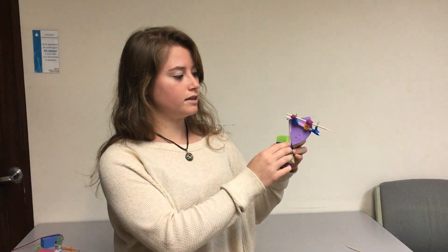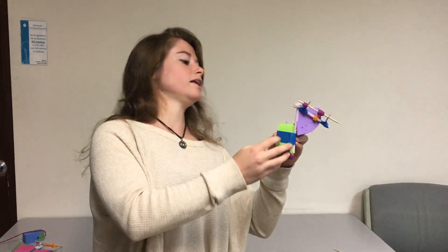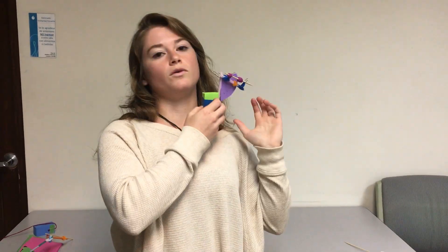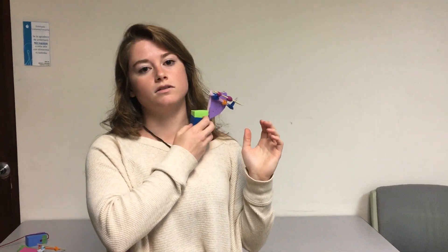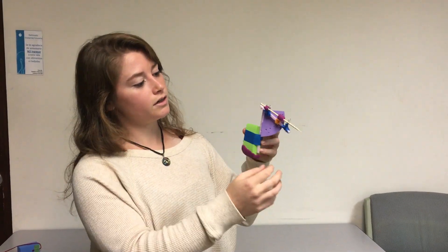I created a device that is going to help with needle positioning when inserting a central line catheter. Here we have an ultrasound that is going to conform somewhat to the shape of the clavicle to improve imaging and visualization of where the veins and arteries are.